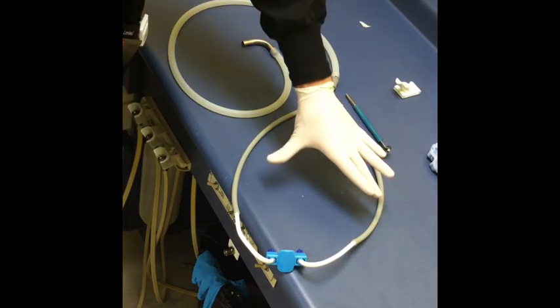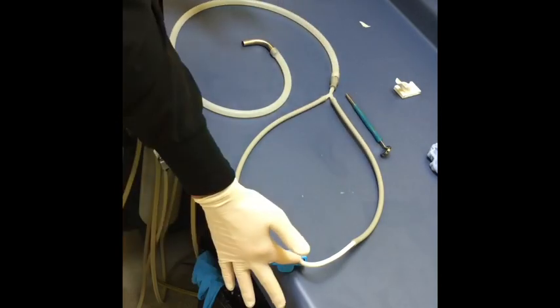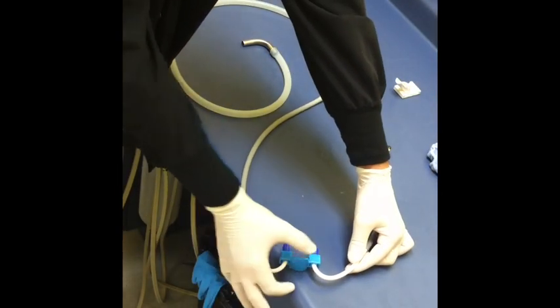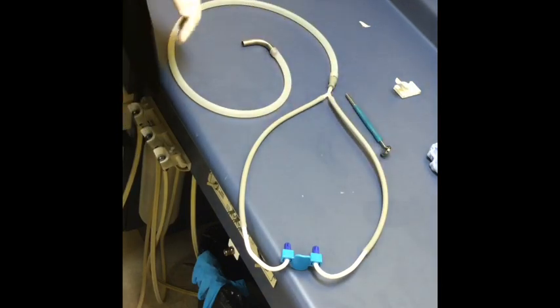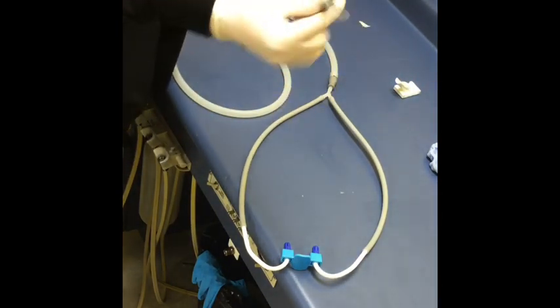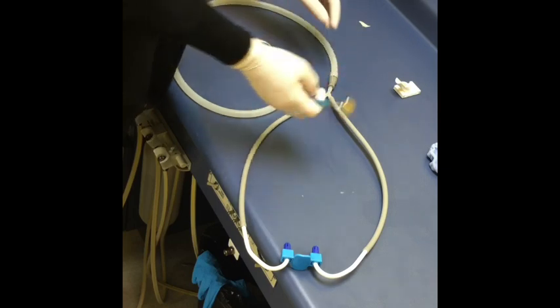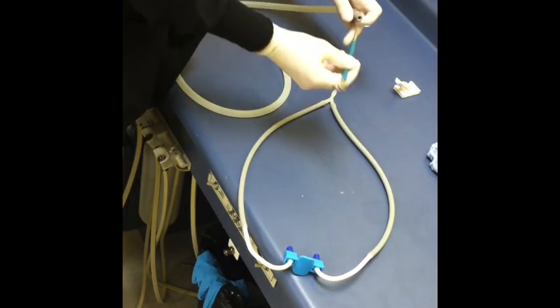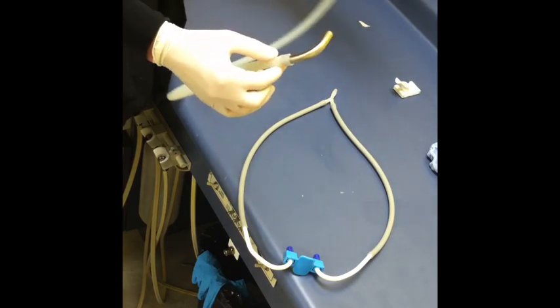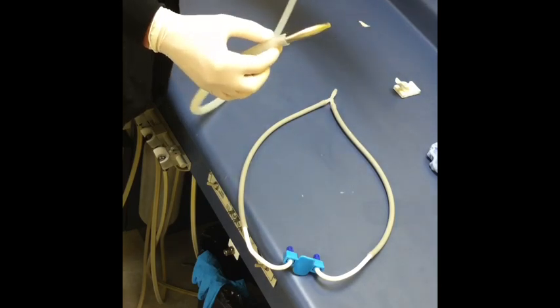This is the Kona block tube set and the Kona block itself. I have two Saliva Ejectors attached. I also have a suction mirror - an autoclavable suction mirror that I get for 36 bucks. You can attach it right to this, so you get HVE suction power with a very flexible tube, and the whole thing can be autoclaved, which is nice.